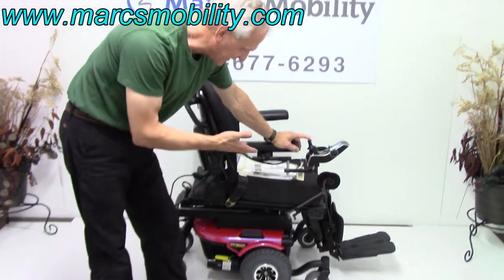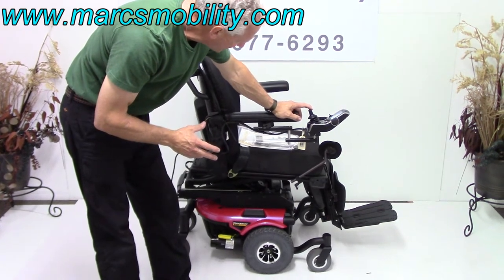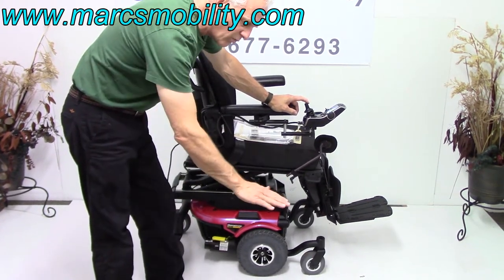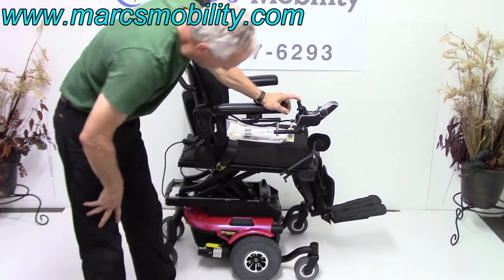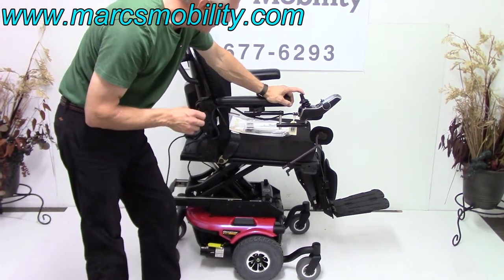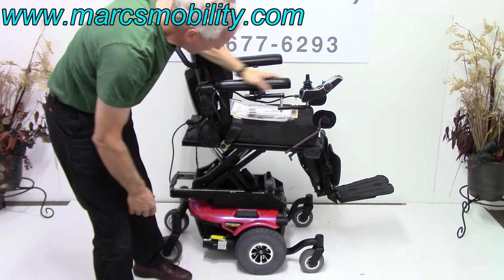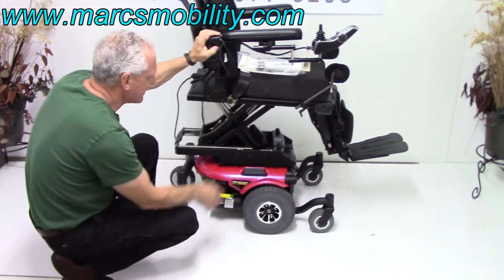This is your 10-inch seat lift. It's a slow seat lift, so it's geared slow. You can stop anywhere you want as you go up. It will go from 21 inches all the way up to 31 inches — the top of the seat will be about 31 inches from the ground. This is a super heavy-duty seat lift — it has four crossbars, two on each side, so the seat is real solid on this chair.